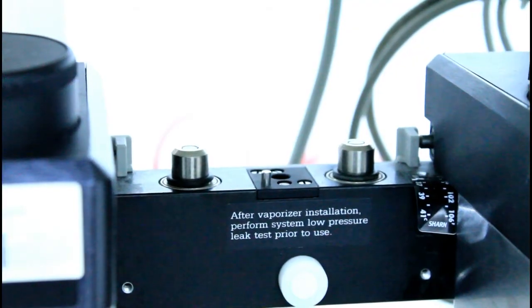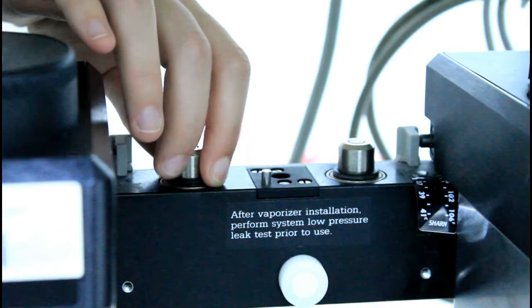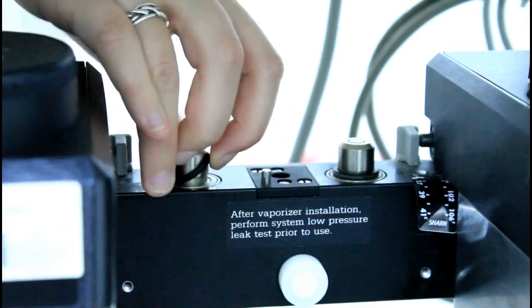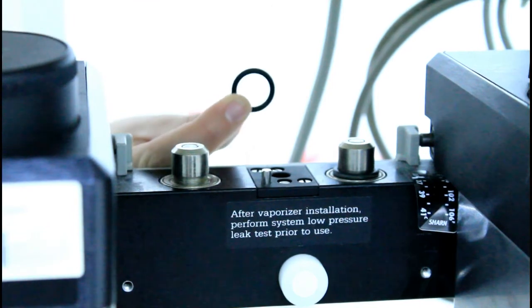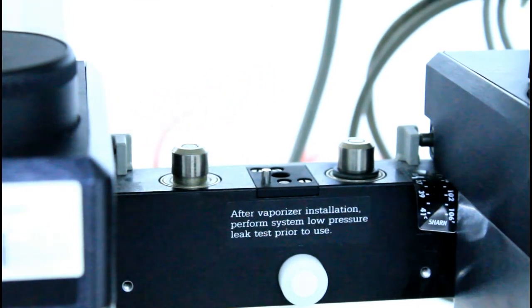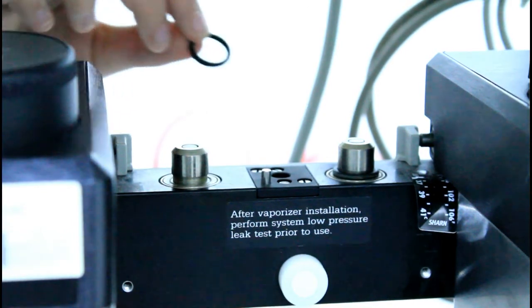Cracked or otherwise damaged O-rings may cause leaks that can have similar consequences to leaks in an anesthesia circuit. These O-rings can be replaced with standard O-rings, which can be acquired from most hardware stores. To replace a faulty O-ring, simply pull it off and substitute a functional O-ring of the same size.